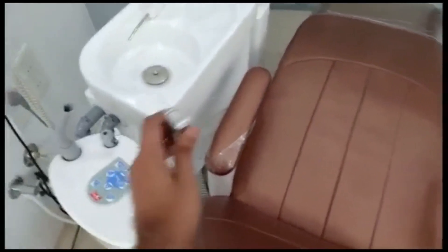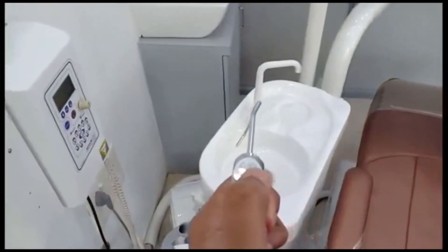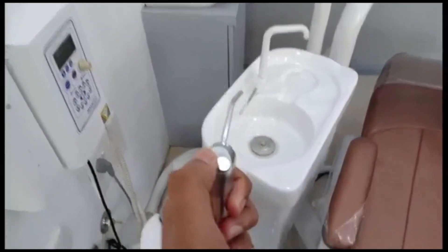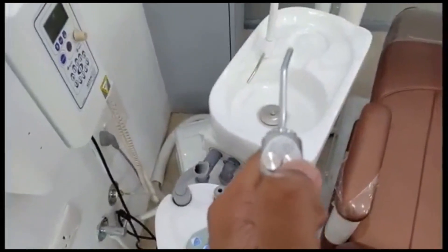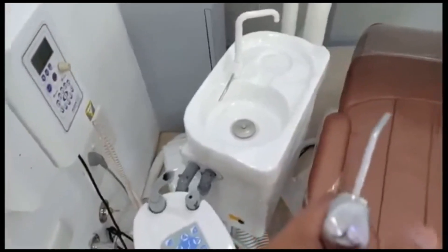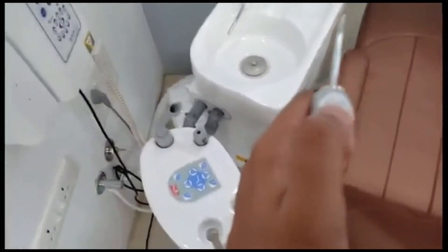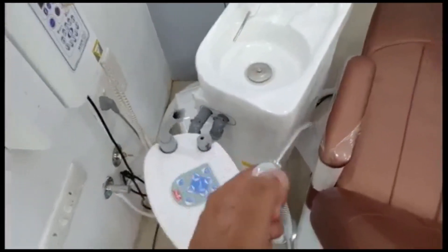This unit has two outlets — one is for water and one is for air. The compressor is not on right now. This is the air outlet and this is the water outlet. While doing the procedure, we need to clear the cavity or the tooth of debris, so we wash it using water from this outlet.